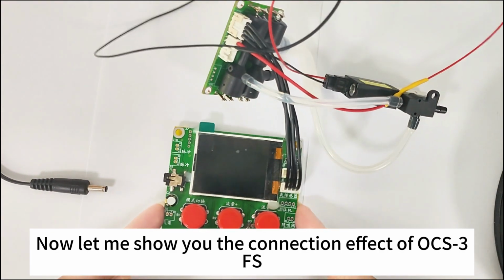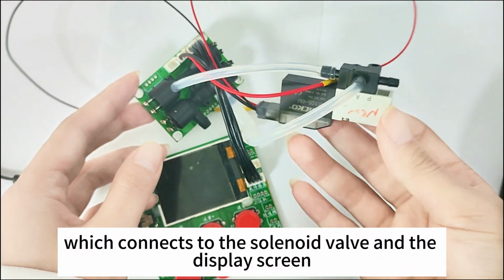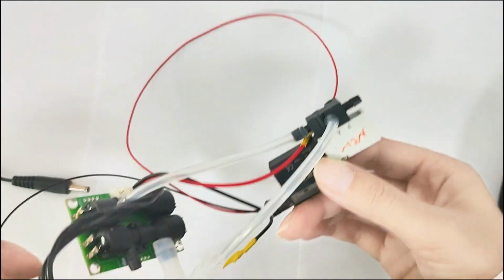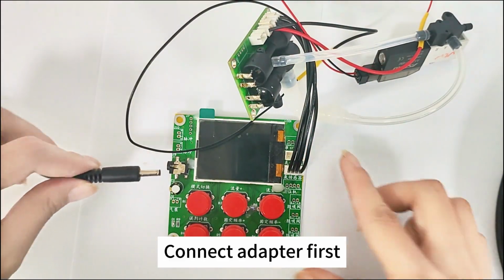Now let me show you the connection effect of OCS3FS. This is OCS3FS, which connects to the solenoid valve and the display screen. Connect adapter first.